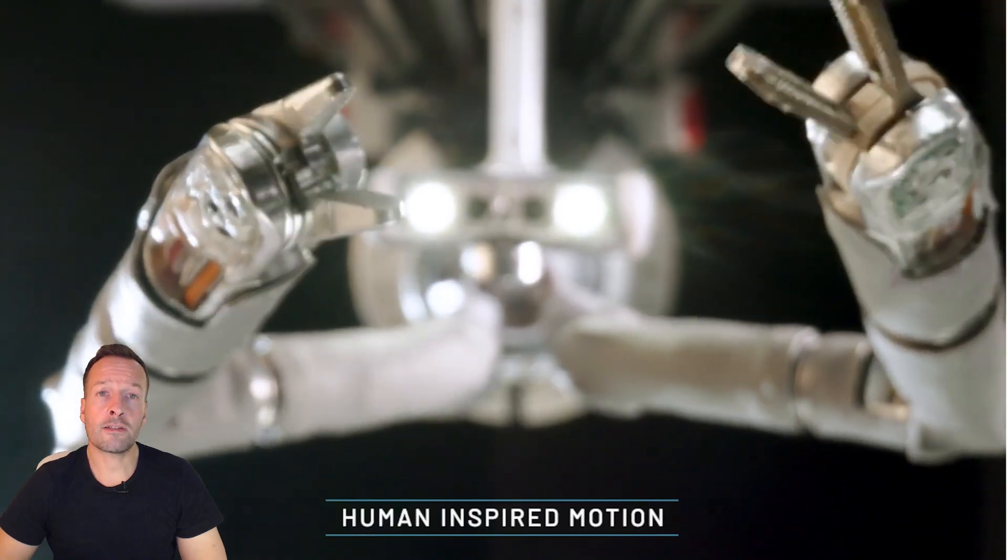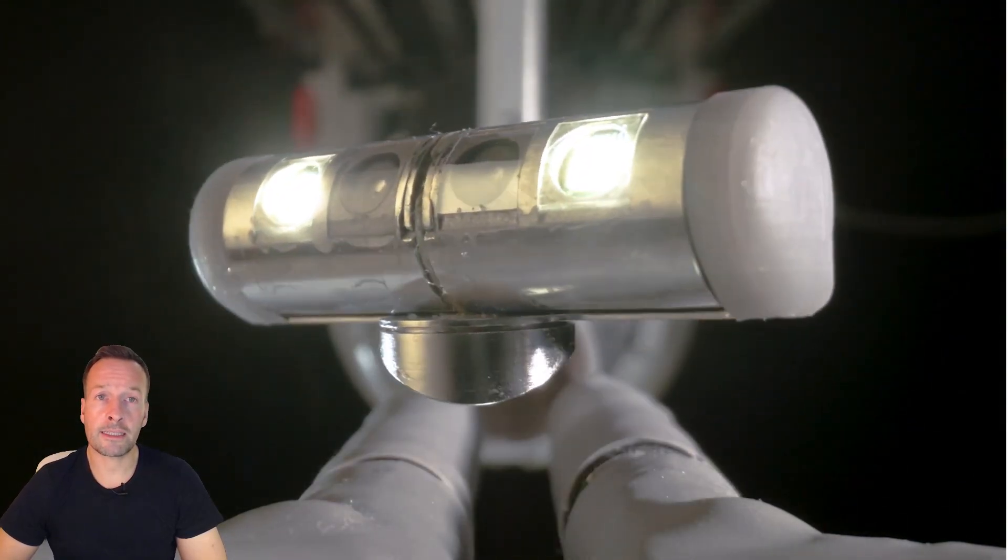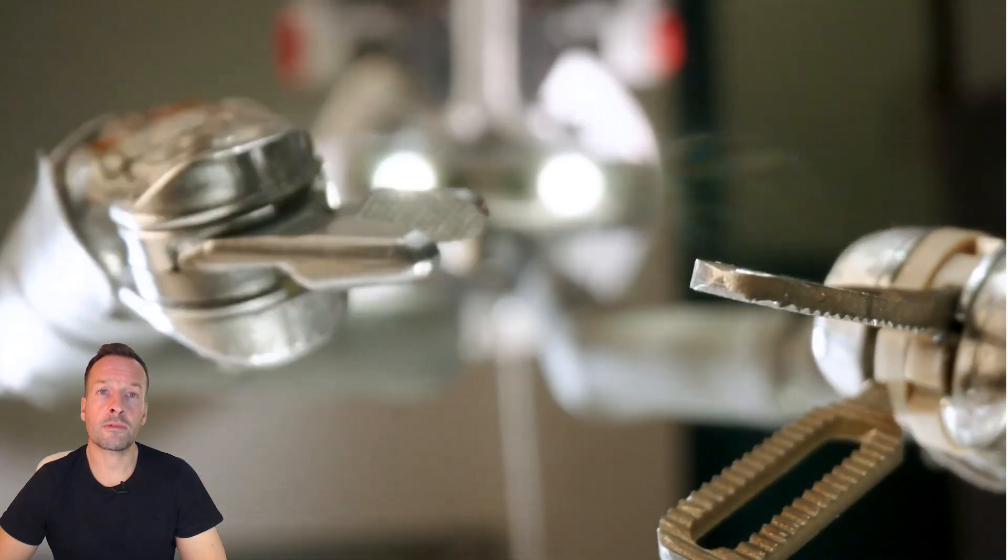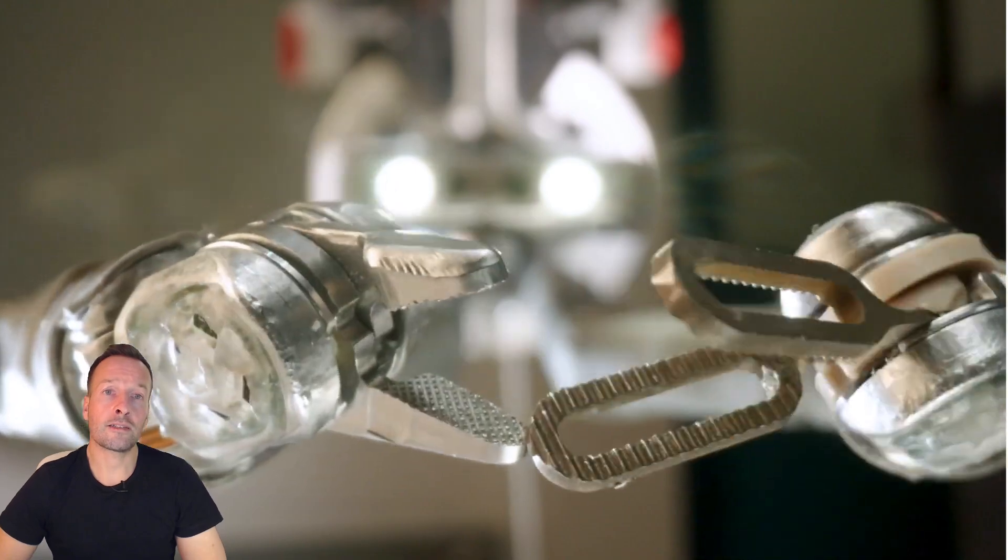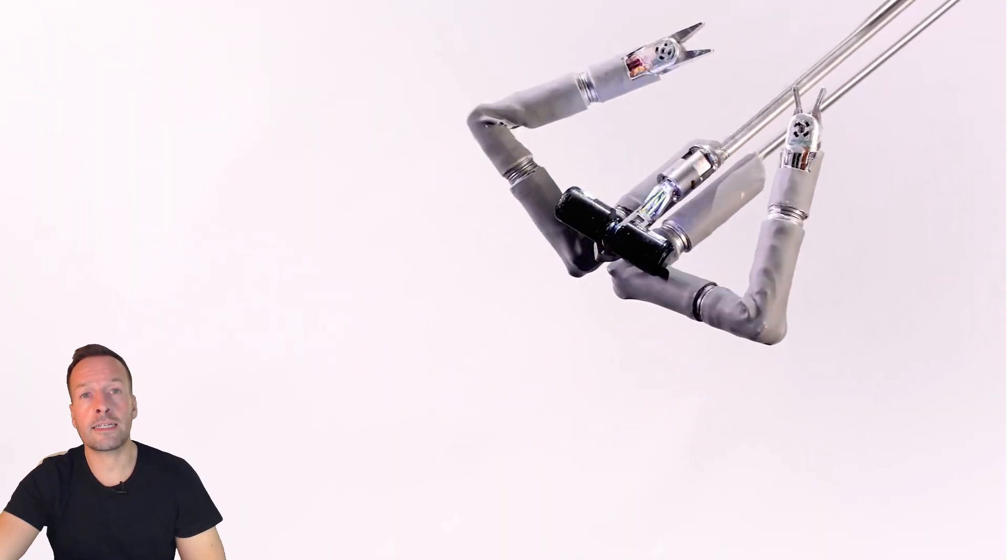Moreover, the technology is expanding access to quality healthcare with remote operation capabilities. Experienced surgeons can perform procedures from afar, bringing top-notch surgical care to underserved regions. This means that more people can benefit from advanced surgical techniques, no matter where they are.